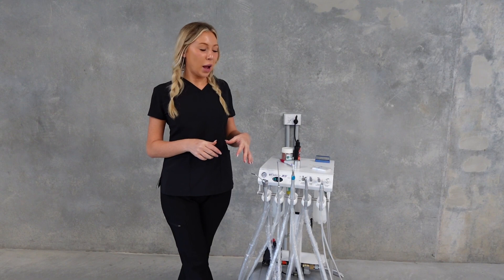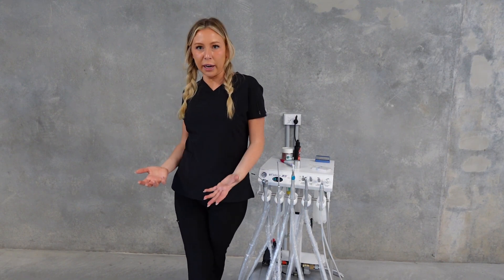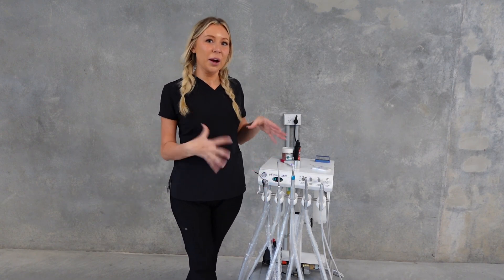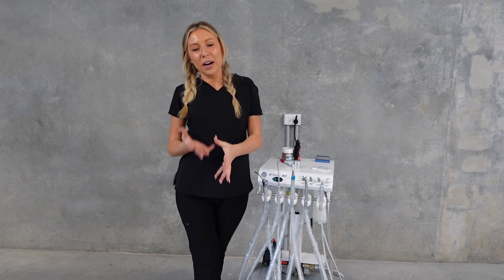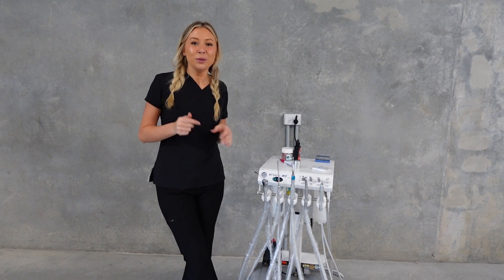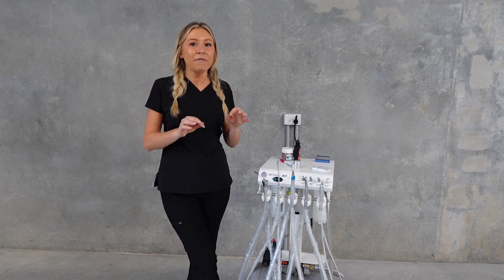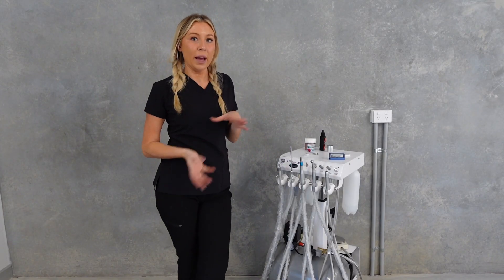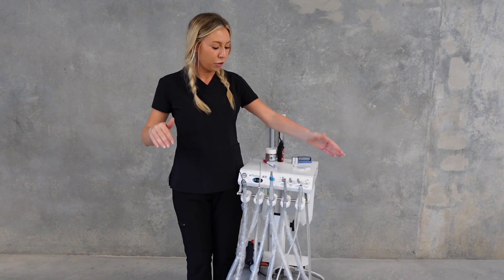In this video I'm looking at a dental workstation and common issues that people experience in clinics using their scaling and their drill. Why do I have no pressure? Why is there no water? When you've got a patient under anesthetic it can get confusing and frustrating. I'm going to go through a couple of common things that happen in clinics and how to fix them really simply, covering some things about the dental machine you might not know.